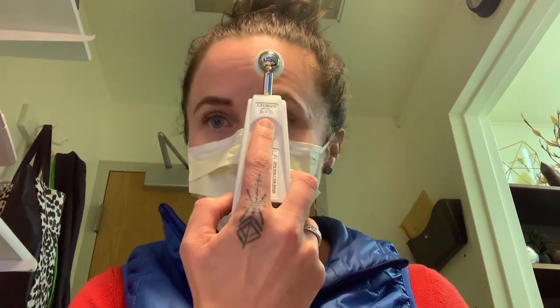This is our temporal scanner, and people kind of do this however they feel like it. The actual correct way is to press it to your forehead, flush against your skin, go across, then lift it off and place it behind your ear. You'll get a temperature — mine says 97.8. So you're removing it and placing it behind the ear: flush across the forehead, lift up while still holding down the button, then behind the ear.